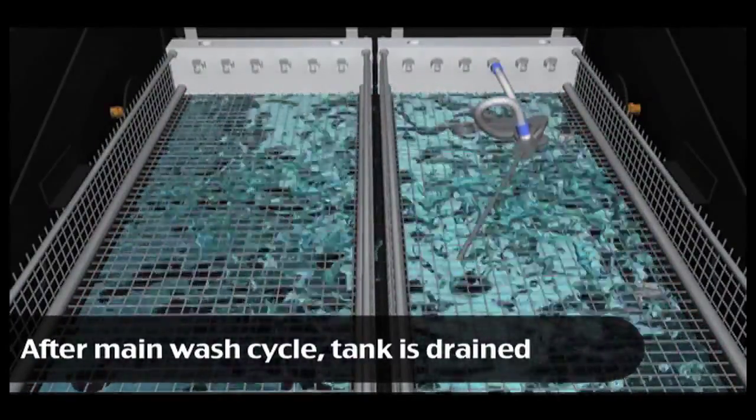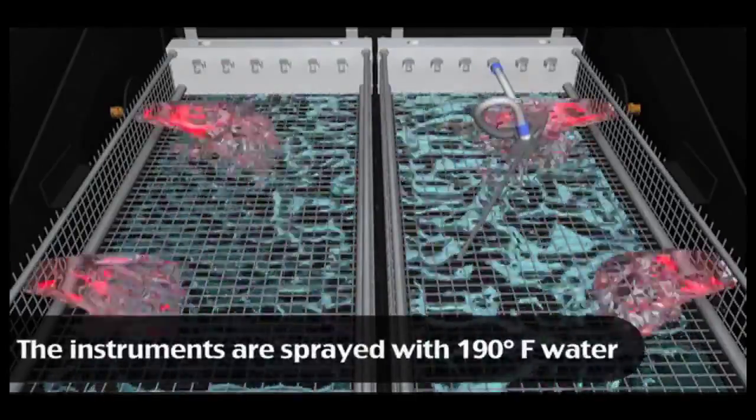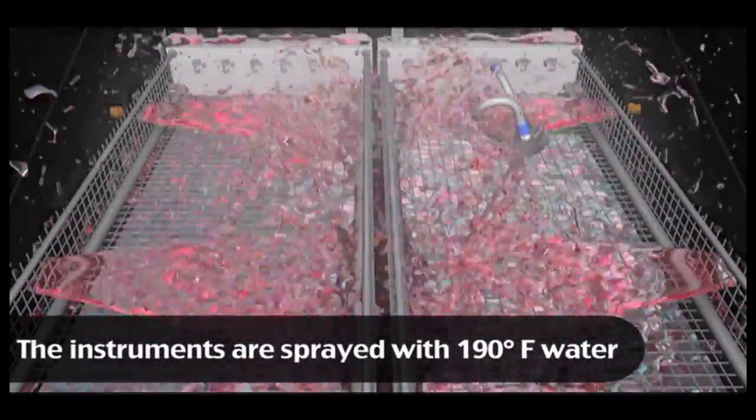This 190 degree rinse lasts for two minutes, achieving thermal disinfection.